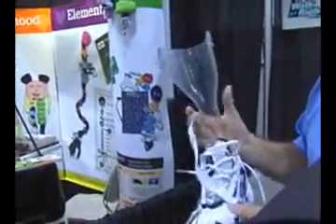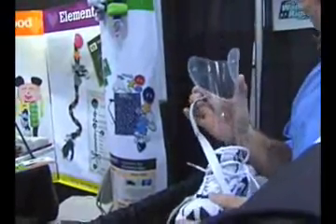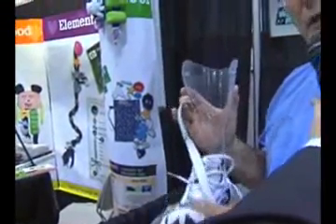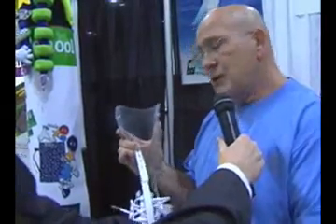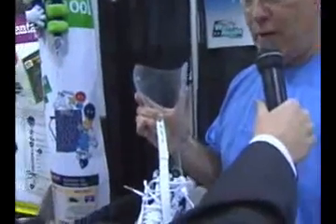The brace itself will enable a person to increase the level of their physical activity to the level that they really want to go and also to the level that their body will allow them to. Since wearing this brace about three years ago, I've actually been able to return to playing some sports like basketball with my son, golfing, or even just walking through the amusement park for ten hours with my children. I can now do that and I'm not fatigued by the end of the day.